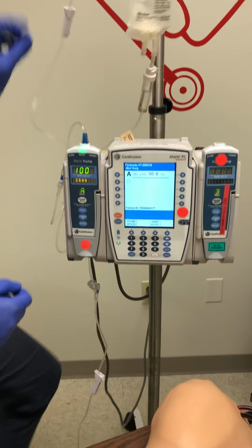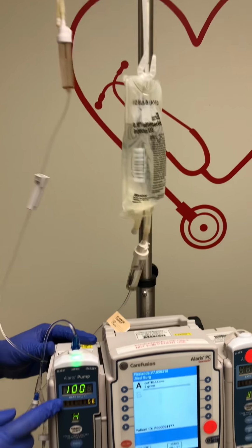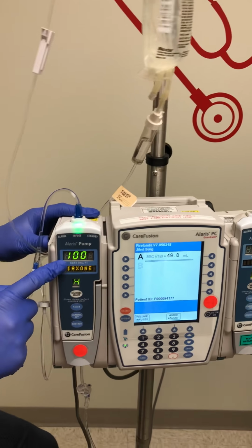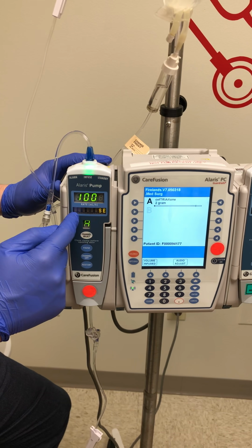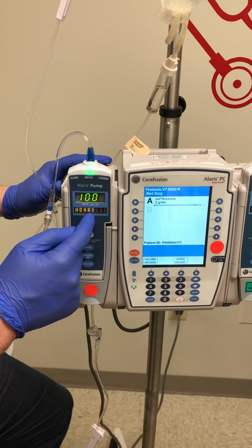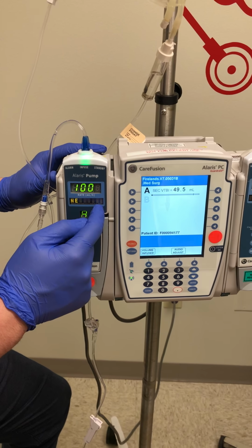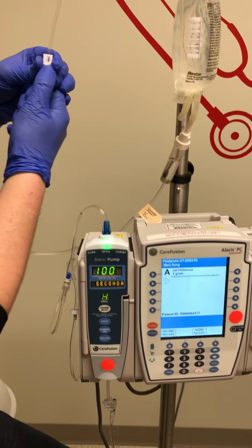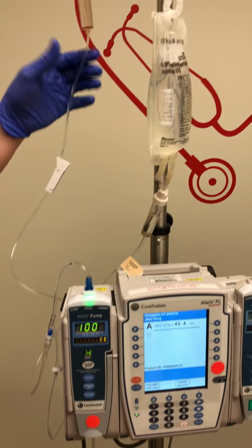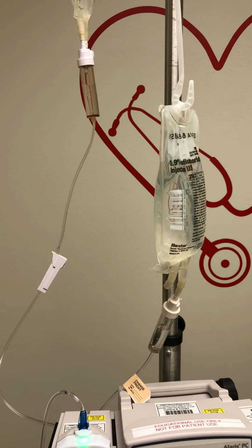And you'll notice here that my IV pump has now changed. Our previous rate for our continuous fluids was 125 milliliters an hour. We are now giving 2 grams of our secondary infusion. It'll tell you the name of the medication. You want to make sure that you unclamp your roller clamp and visualize your secondary medication dripping into the chamber.